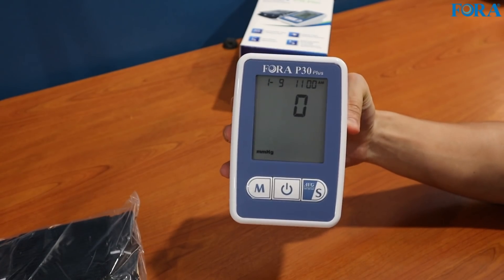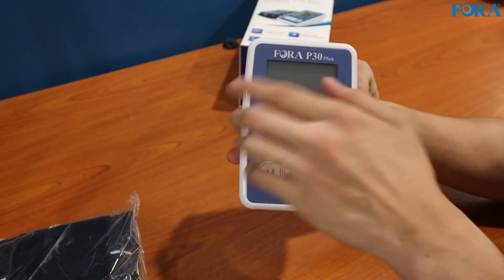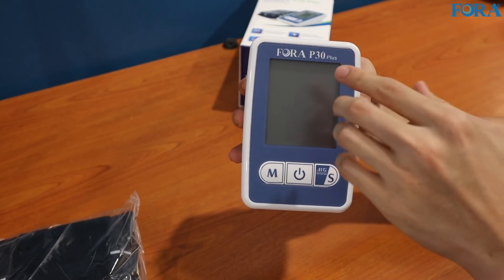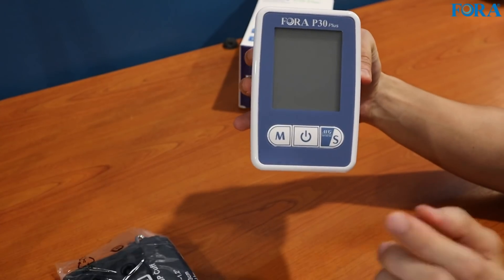Okay — it's starting to take some measurement. Let's put it off. As you can see, there was a lot of information there just now, like the date and time. Let me set it up and unbox this cuff and I'll get back to you.